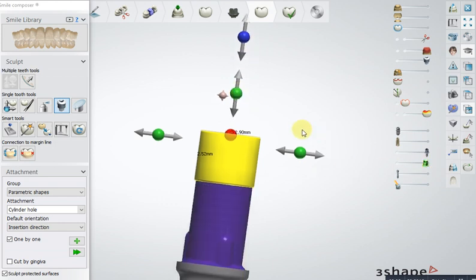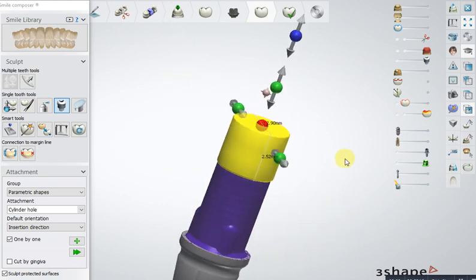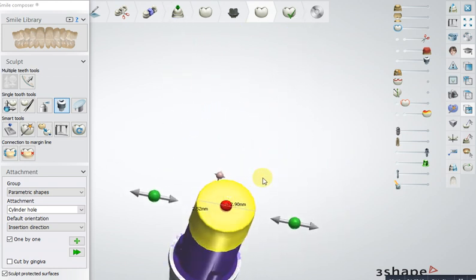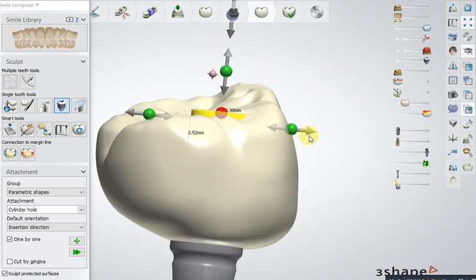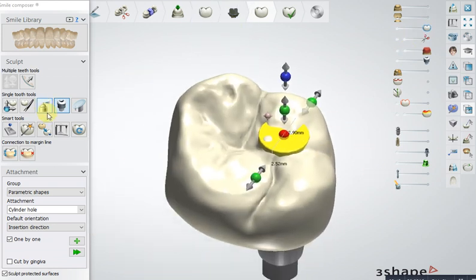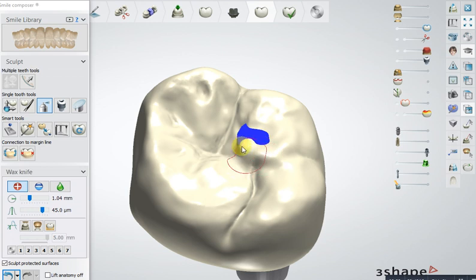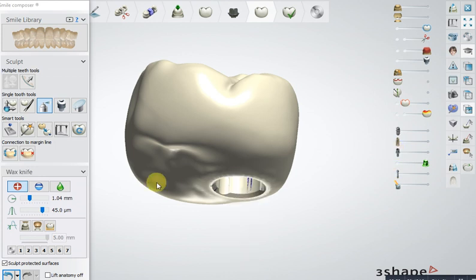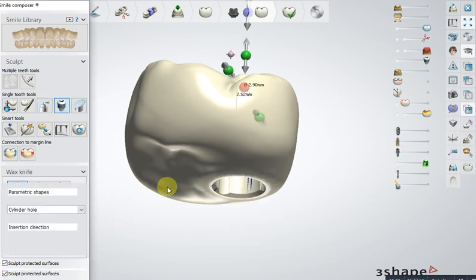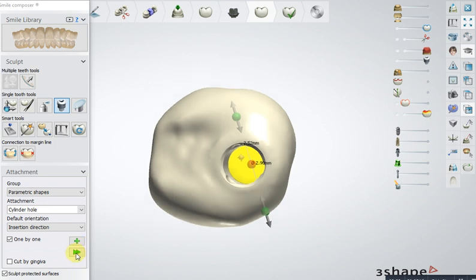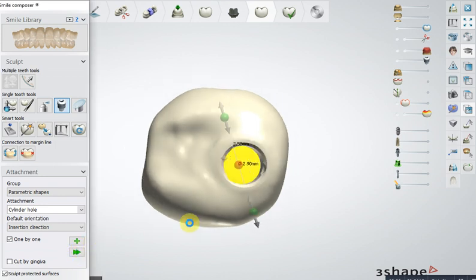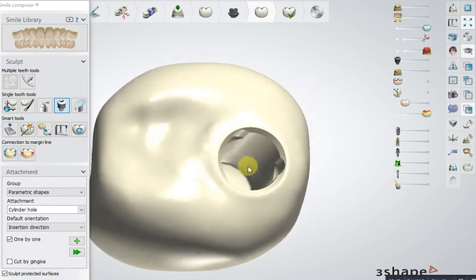Then you make your cover so it completely covers everything. You have to cover this area also so that after the cutting it will not penetrate. You have to cover this area, and that's all. Now we will apply the attachment. Now we have the inside area where we can sculpt.